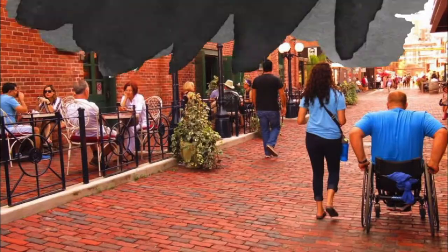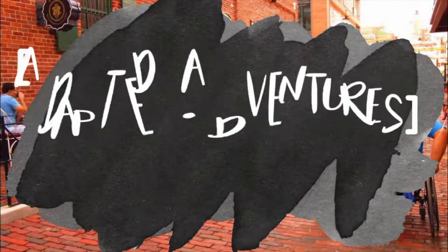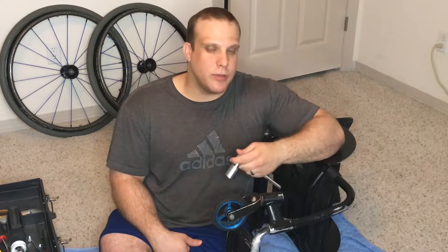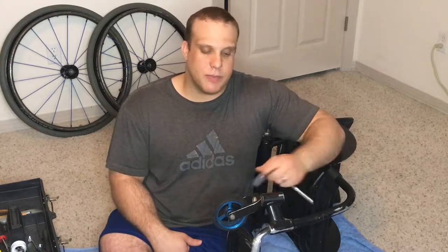In this week's video, I've got a squeak and I'm going to show you how to fix it. Hey guys, welcome back to the channel. I'm Casey and this week I'm coming back at you with another 5-minute maintenance tip. What we're doing is replacing the caster fork bearings. Mine are shot from the winter and so they're squeaking a little bit. This one's a little bit more involved than the last one we did, but it's still very doable. It will change a little bit depending on the kind of chair you have, but I'll take you through it step by step and we'll get it done.